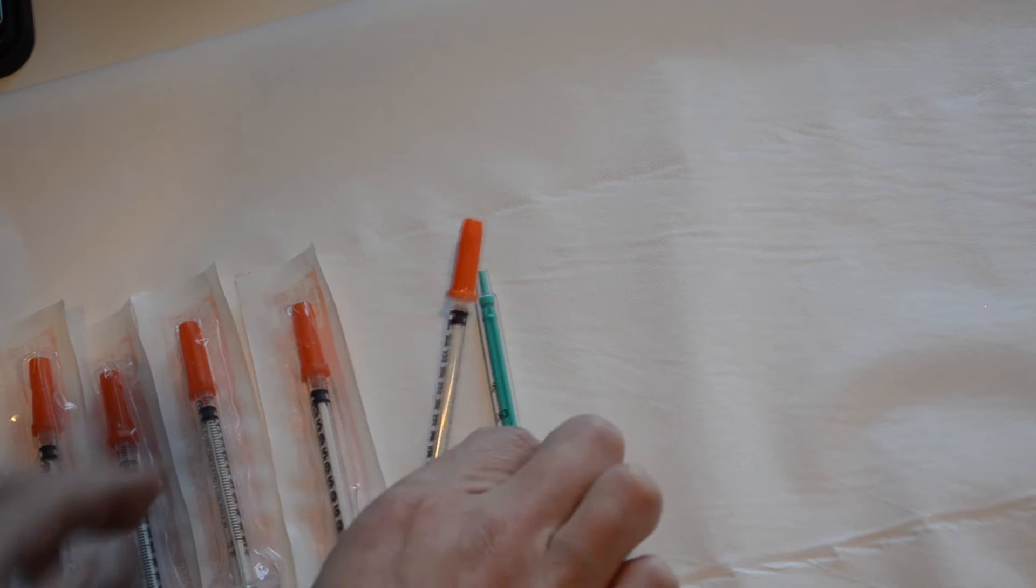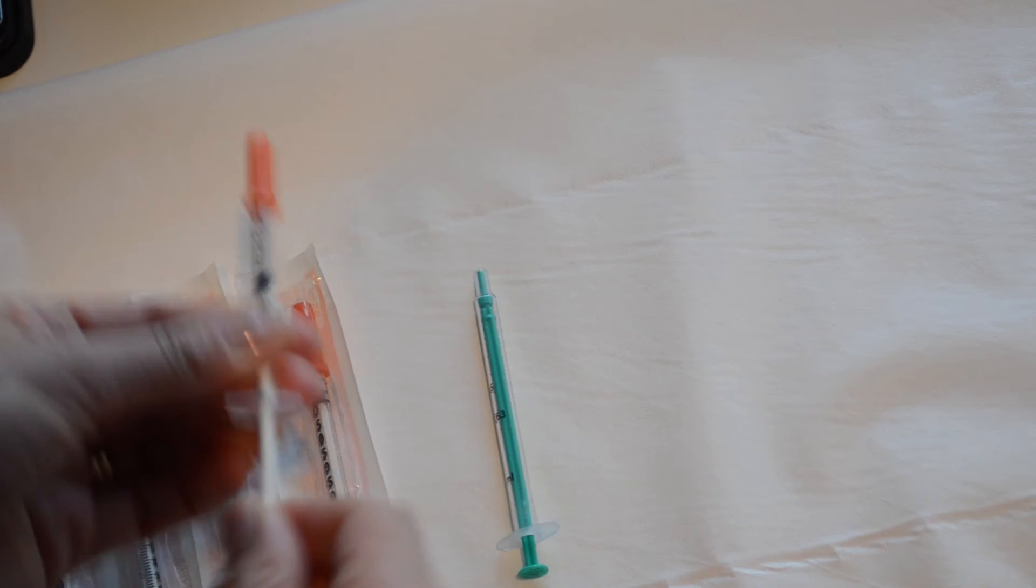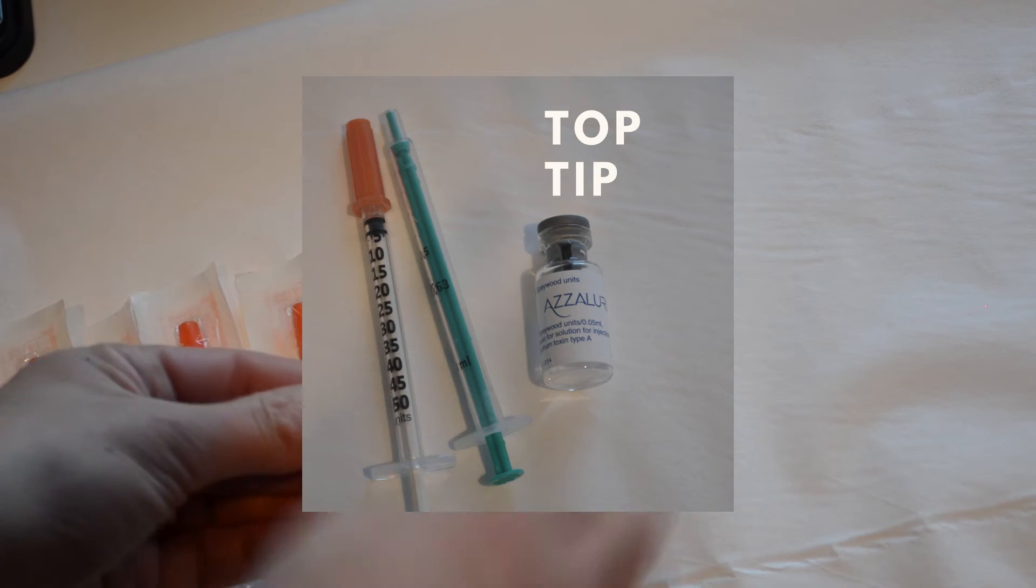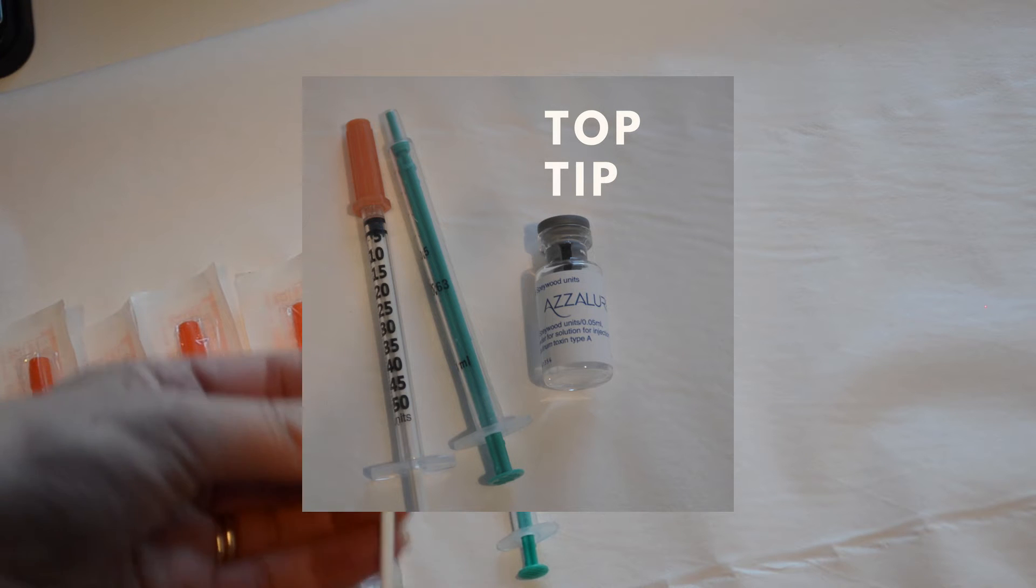Very important that when you open your syringe is that you give them a little prime because the product can sometimes maybe the plunger can get a little bit sticky.